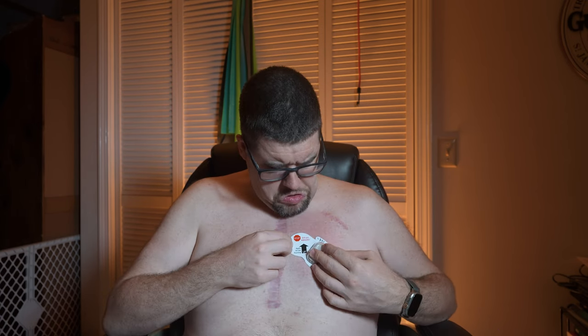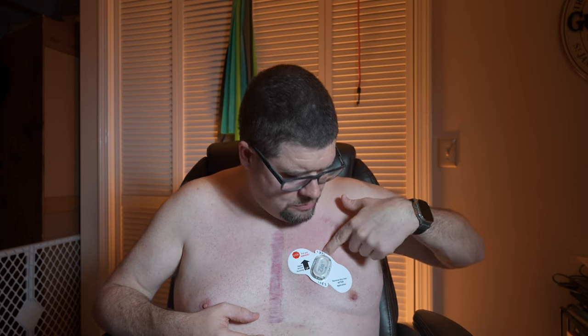I'm supposed to put it up here, but if I put it on top of the ICD, is it going to pick up the ICD signal? And will it even pick up the heart because it has to go through the ICD? I'm thinking I need to put it down underneath the ICD. So I'm going to take the leap and say I need to put it down here further. The ICD ends right here, so I probably could have come up just a little bit.